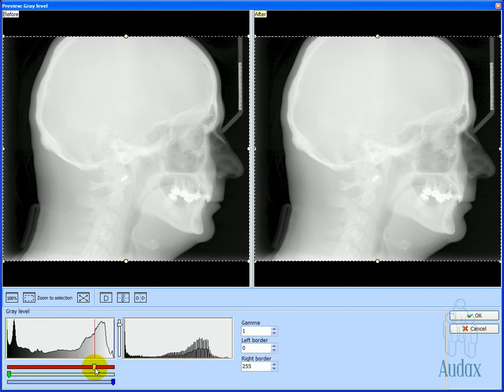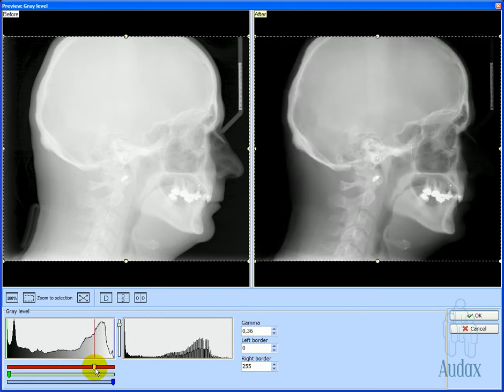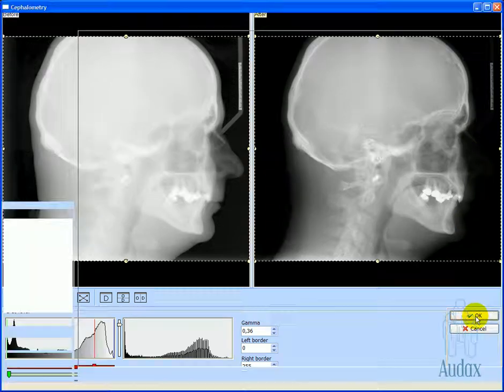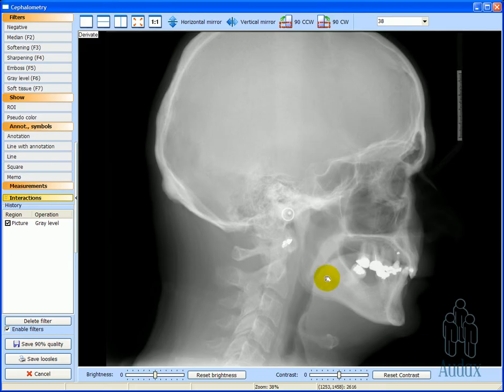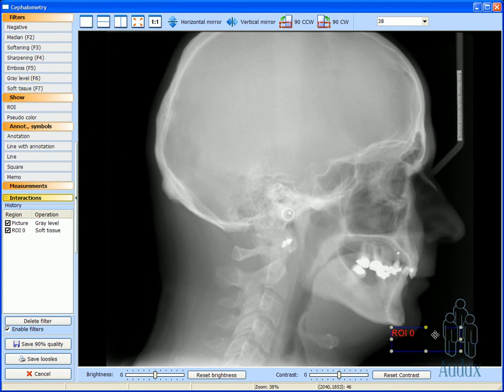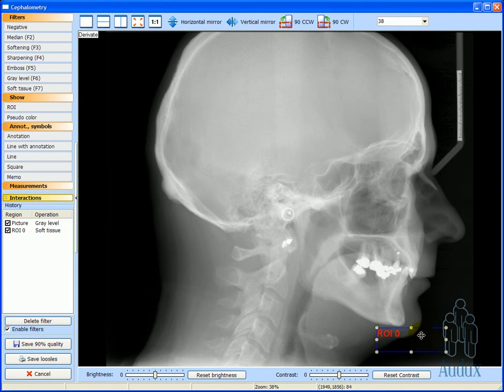The image that is too bright is first darkened. By applying the filter, the soft tissue silhouette that is needed to create a face outline is lost. By using the special soft tissue filter, that problem is easily solved.